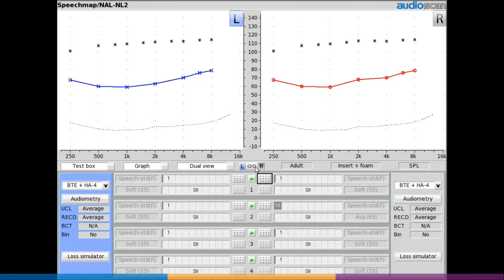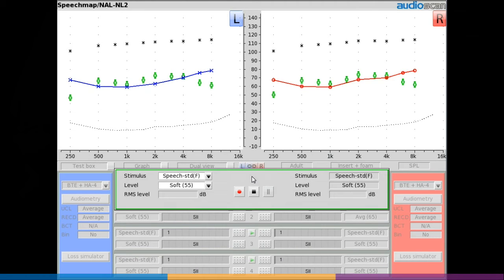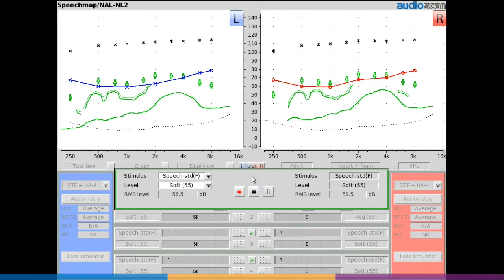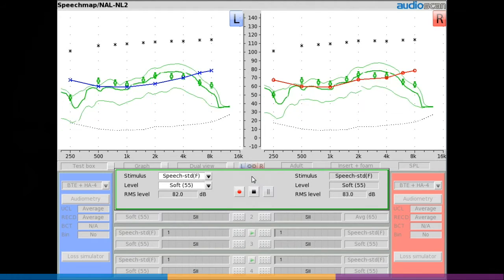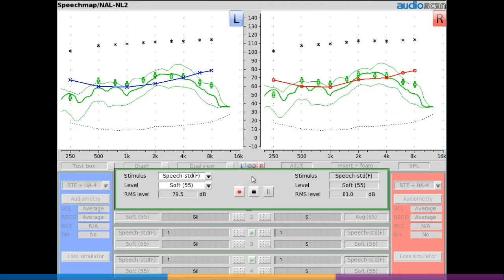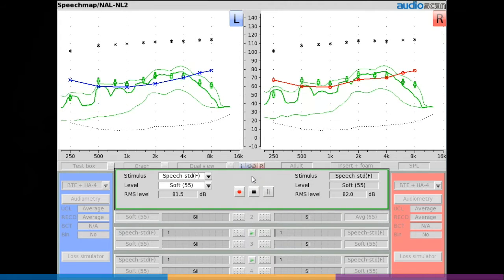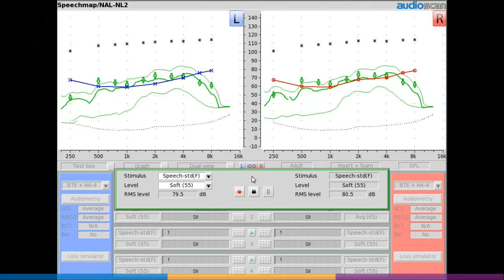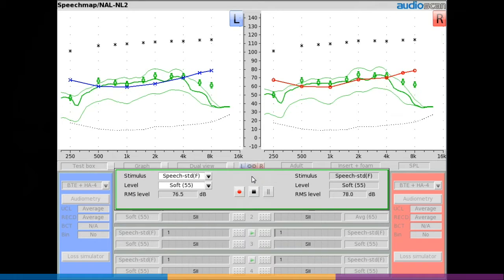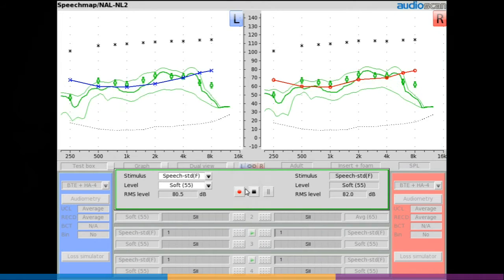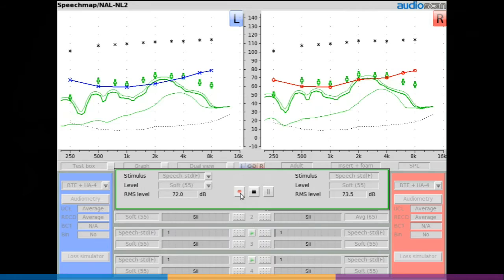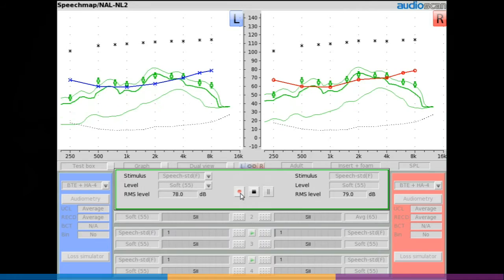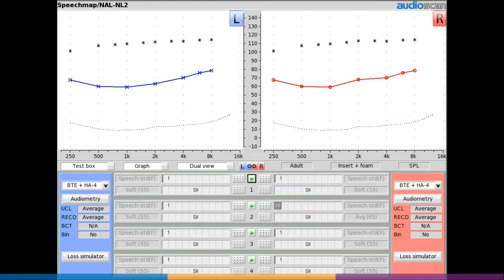Select the left-right link button in dual view speech map, and one stimulus level and signal type will be applied to both sides. Live measurement results will be displayed simultaneously for both instruments. Once any adjustments have been made and the devices are set as desired, click the record button to complete the measurement.